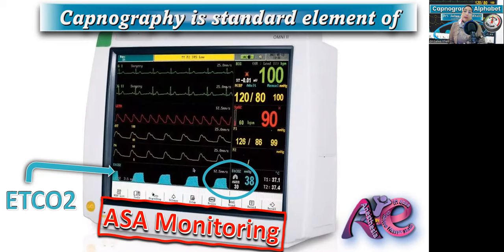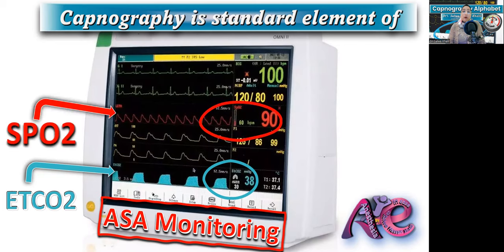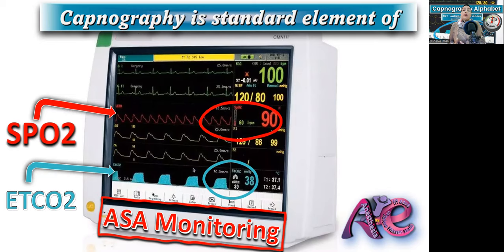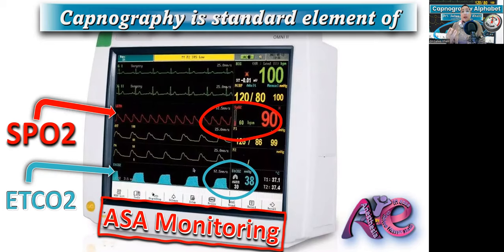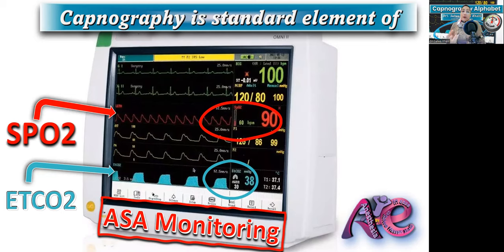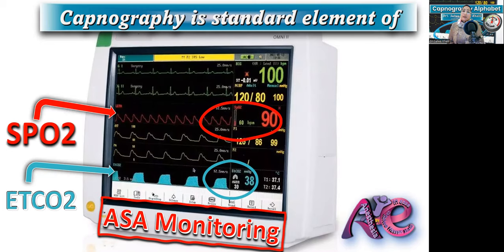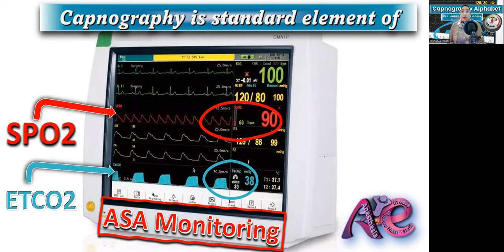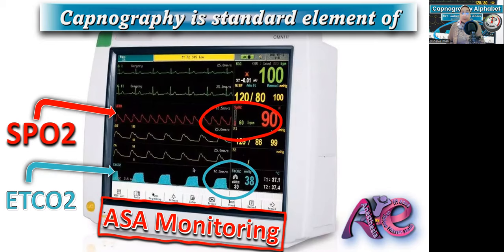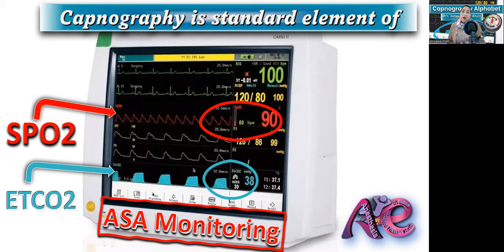You are not allowed to anesthetize your patient without this monitoring. Capnography is the most important element. Also SPO2, oxygen saturation, using pulse oximetry. Our role as an anesthesiologist is to prevent hypoxia and prevent anesthesia mishaps. By using capnography and pulse oximetry together, we can prevent almost 93% of avoidable anesthesia mishaps according to the closed claims study.